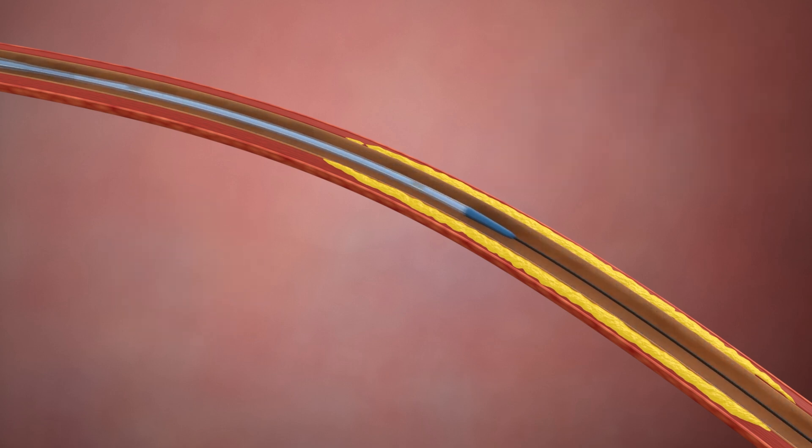Angiography can be performed at any time, on the fly, while maintaining guide wire access.